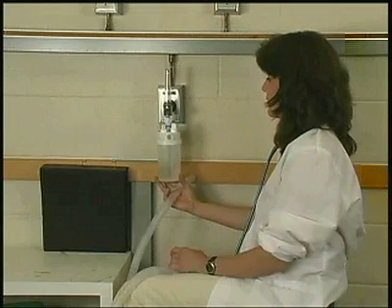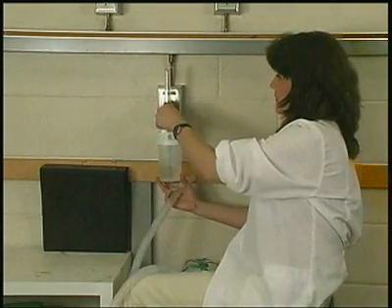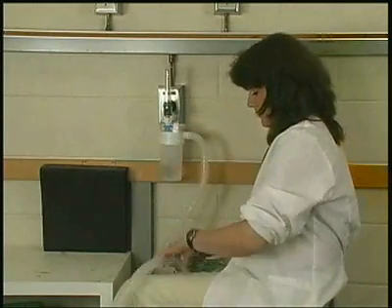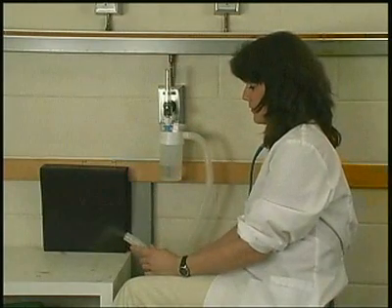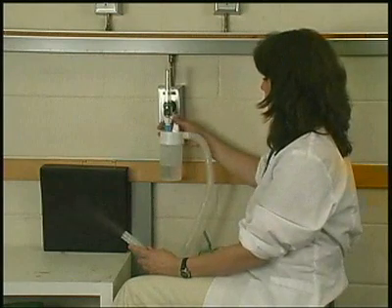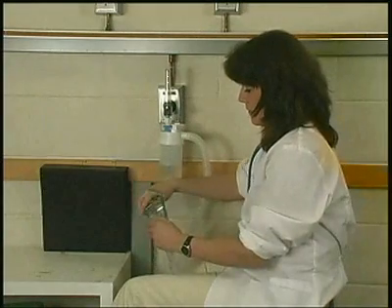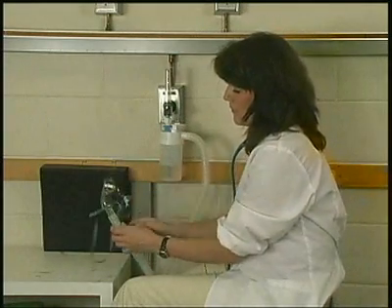A nebulizer actually forms an aerosol of the solution, thereby adding particulate water and giving much higher humidification levels. This device can also deliver varying percentages of oxygen concentrations. Large bore tubing can be connected to an aerosol mask, trach mask, or face tent to be administered to the patient.